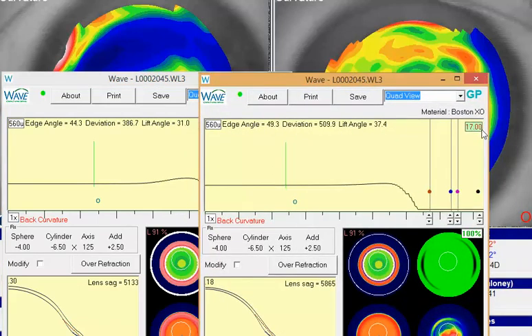If you just go a little bit larger, I would just try making this lens a little larger. If you go up to about a millimeter larger, you're going to notice when you get to be about all the way out to 11.5, 11.6. So go a little bit larger, basically takes that area that's touching and sends it further out, gets it away from that area on the left cornea. I think that'll help the comfort of this lens and the performance overall.